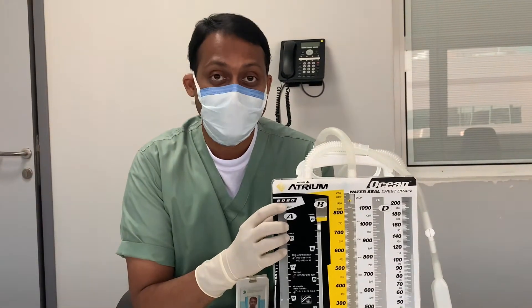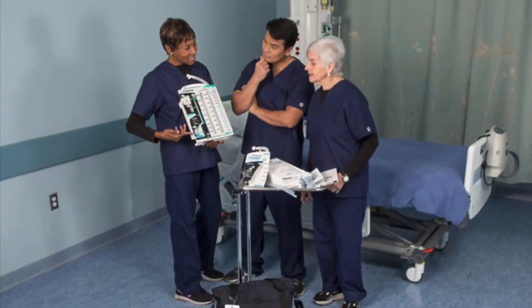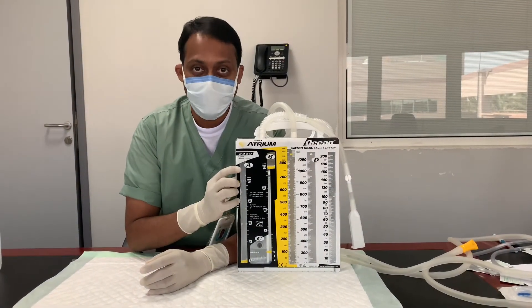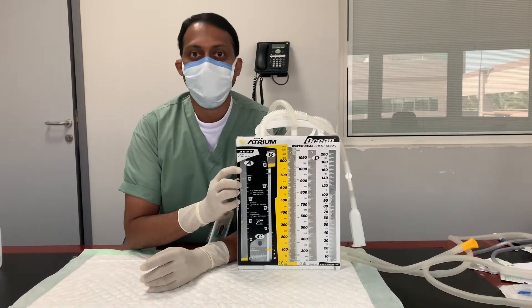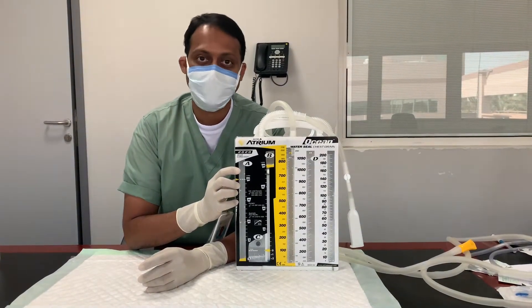Assalamu alaikum, a very good day. Welcome to this small tutorial video regarding the chest tube drainage system — the atrium model chest tube drainage system. This video is mainly to introduce the atrium chest tube drainage system. I will not be going into detail about the indications, contraindications, and complications of chest tube insertion and nursing management.